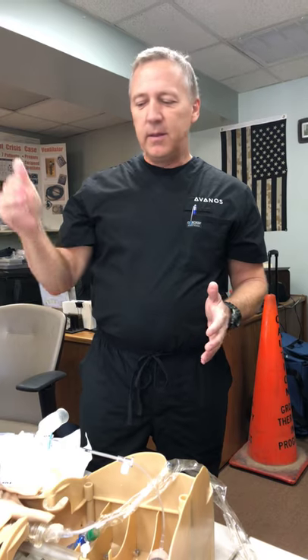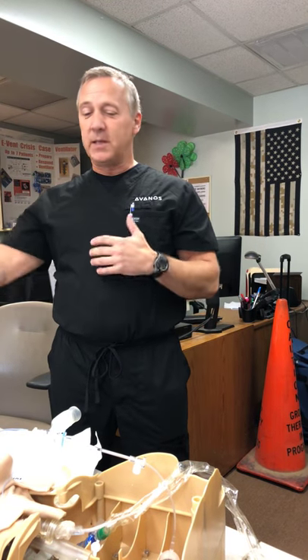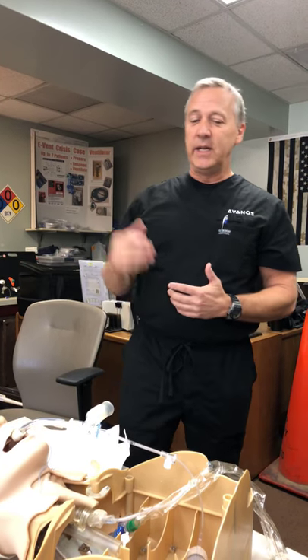So a little bit choppy there as far as setting it up, but the guys that are really good with this — it is really a five to ten minute procedure by the time you bring all your supplies to the bedside, set up, and go. Once you get proficient at it, I don't know how you guys would set up here — whether you would have a super user or one or two people that would be responsible. That's really the best way to go because otherwise you can't control the quality of your specimens. If you're not doing it every day or every other day, it does become a little clunky. If you're doing it regularly, it's a very easy process.